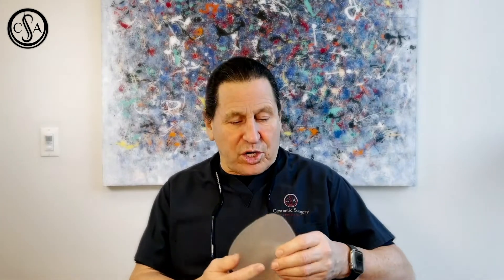What we have here is an implant sizer. This gives an excellent idea of what size you're going to be. A woman comes in, we go into a sports bra that's slightly large, we put the sizer in over her own breasts, and then she can see and actually feel a little bit what she'll look like with that size implant. And we have a multitude of implants.